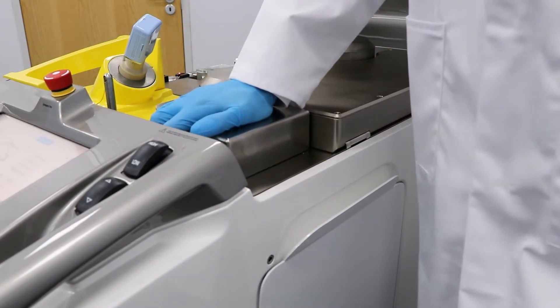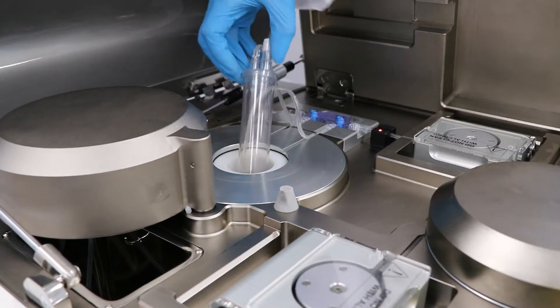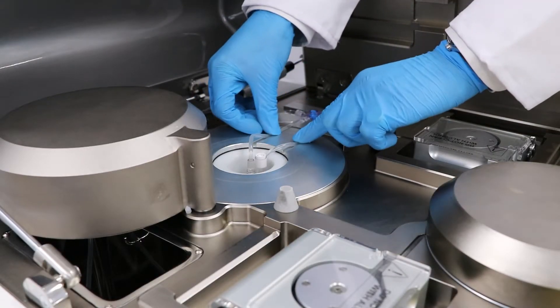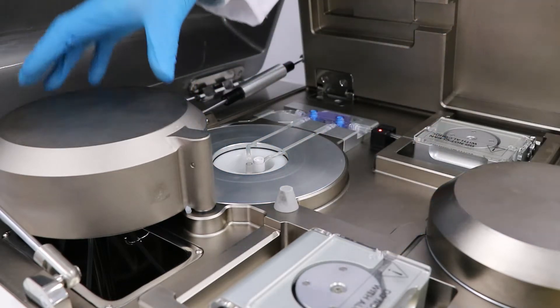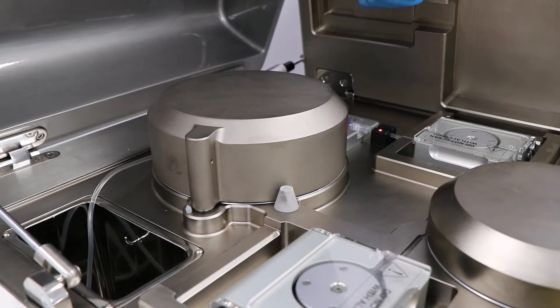The drawing of the dose from the bulk vial is transferred to a 60mm lead shielded compartment, providing full operator protection throughout the process. Furthermore, the built-in Geiger-Müller tube allows for continuous real-time dosimetry monitoring.